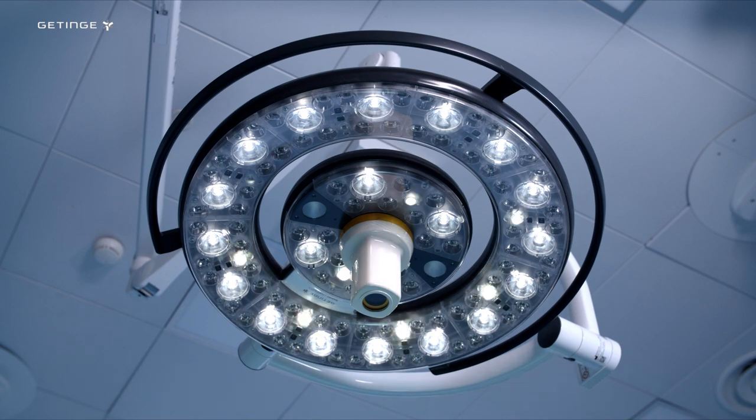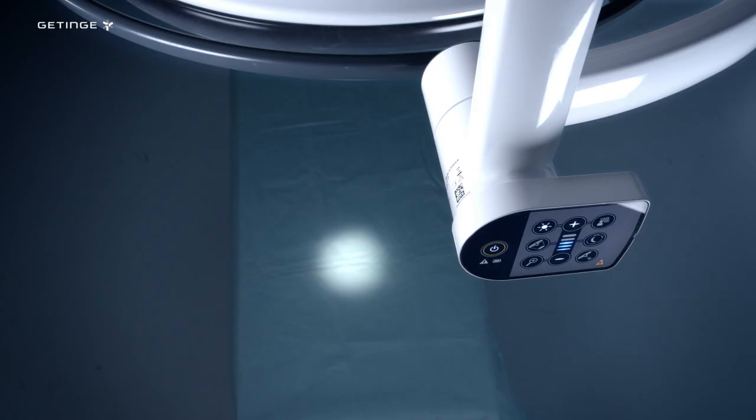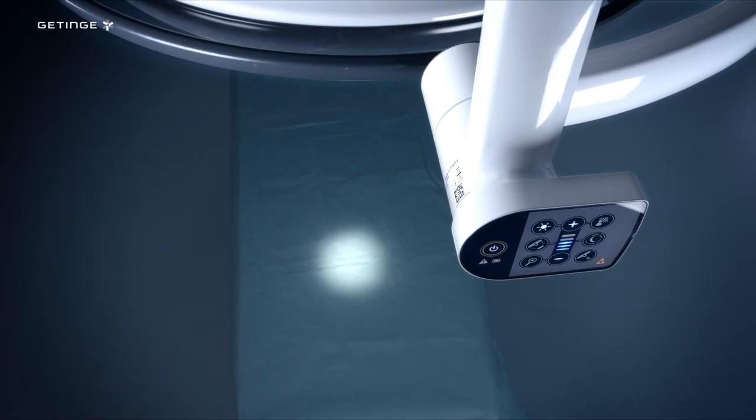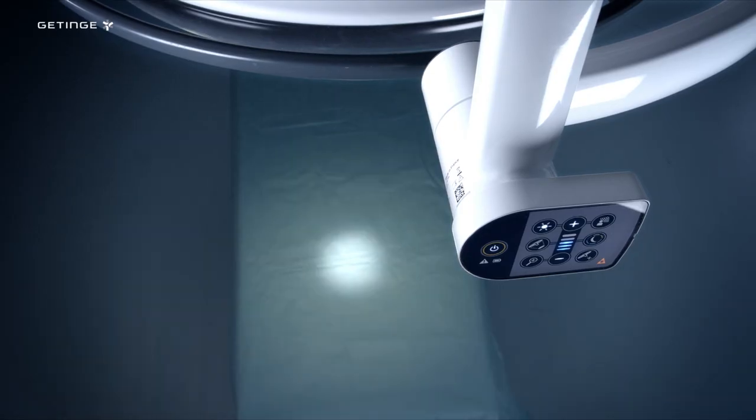The Comfort Light option offers a gradual transition between the illuminated surgical patch and ambient room lighting. A clinical study was performed using this option.